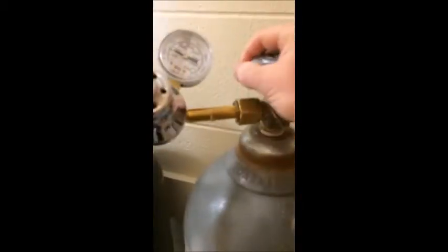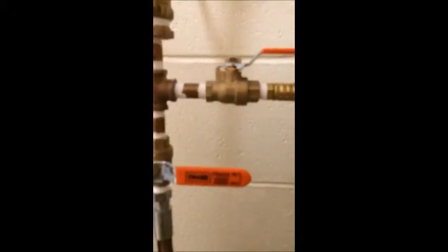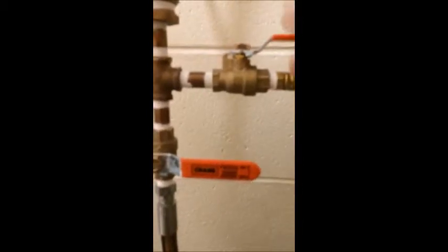As you can see here, the first thing you'll see when you walk in the door of the newer SimLab is a bunch of tanks. One is nitrogen, and the second one is CO2. We have 2 tanks of oxygen because we use so much of it. So whichever one is labeled in use is the one you should use. You turn it on, and you also have to make sure that the shut-off valve is turned on. Please don't be afraid to change the tanks if they run empty. I would really, really appreciate it.